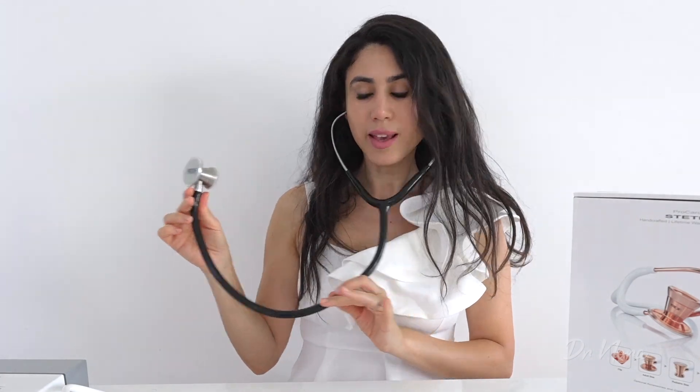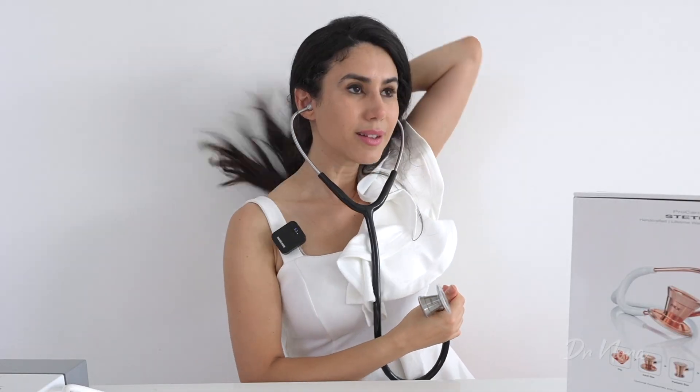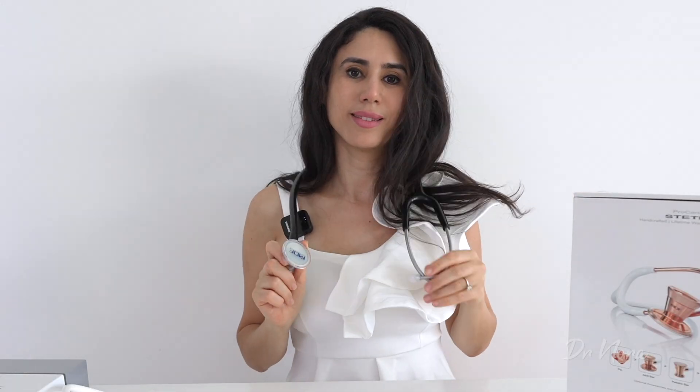There is a bit of a twist with this stethoscope out of the box — this also happened with the MD1 — but it does readjust with time and eventually fits into your ears quite nicely. Now, this is how it looks worn around the ears, and if you wear your stethoscope on your neck, this is what it looks like.